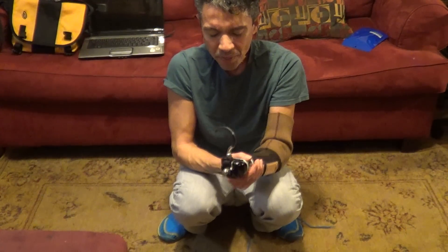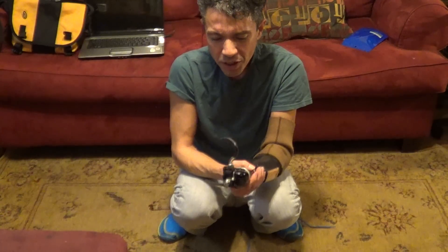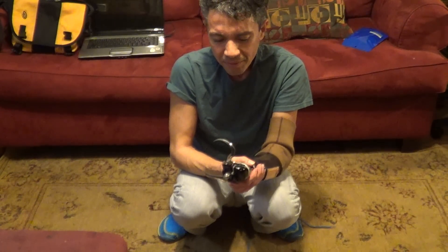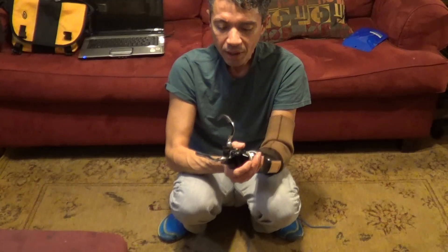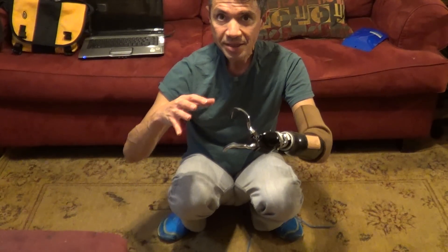But I'm having a little bit of problems right now, so maybe right now isn't a good time to film. But right now is the time I need to show patience and relax and really try to show that I can do this. Okay, I've got the flexion going — and that's when I tilt the wrist to make it so I can tie.